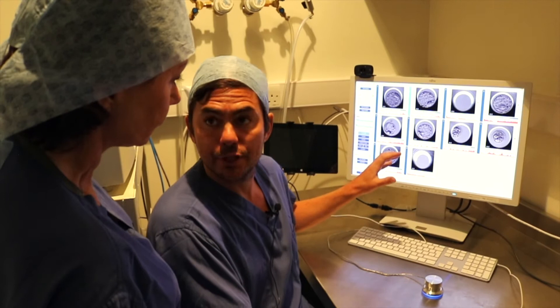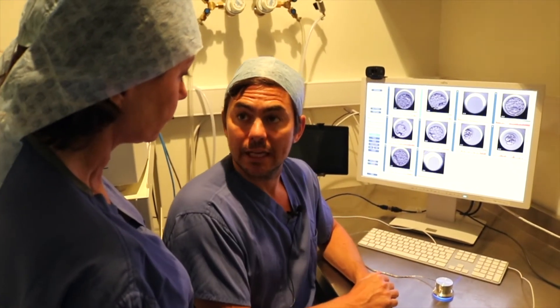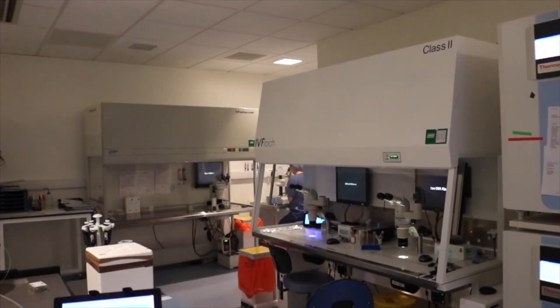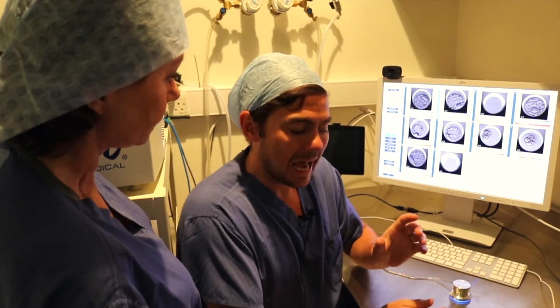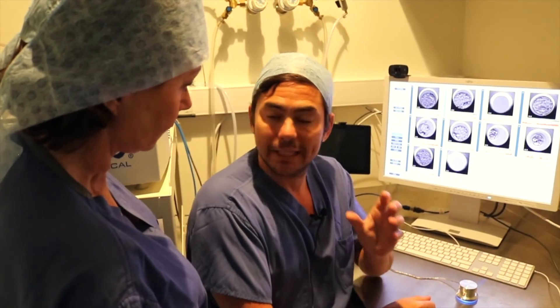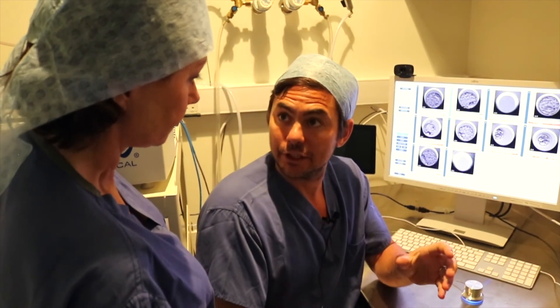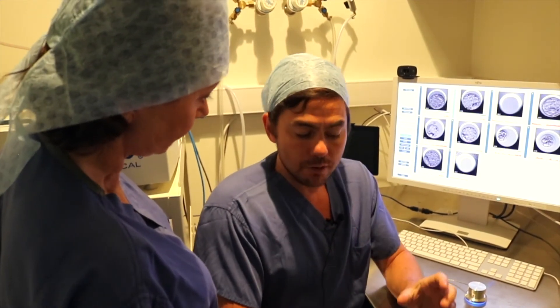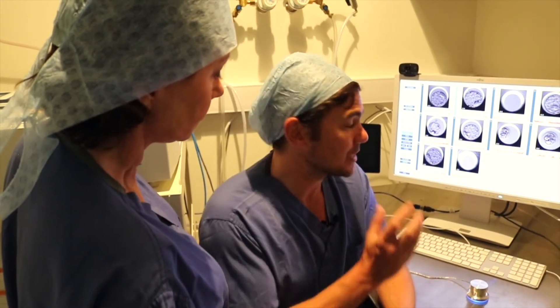This is where time-lapse imaging comes into its own. Using previous technologies — such as these large incubators around us that don't have cameras in — an embryologist takes a dish out of the incubator once a day, has a look at that embryo, and makes all of their decisions based just on that one assessment. We know now that looking at the embryo once a day is not sufficient in making the right selection choice of which embryo to put back, and that's where this technology is totally invaluable.